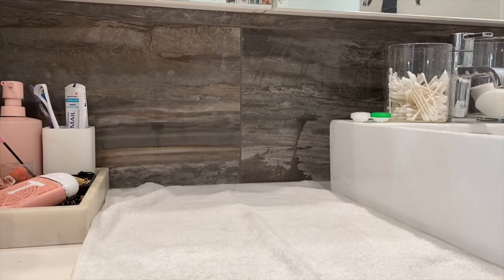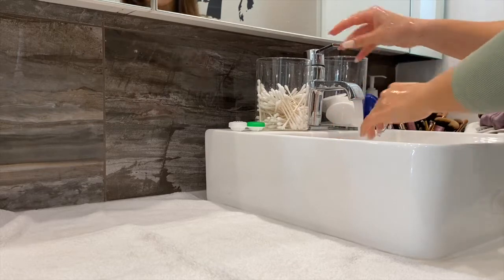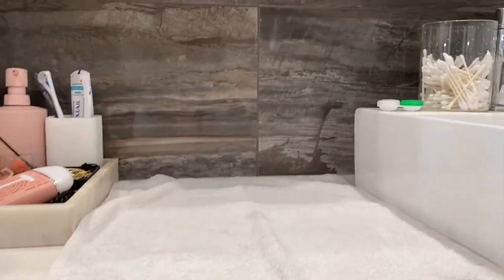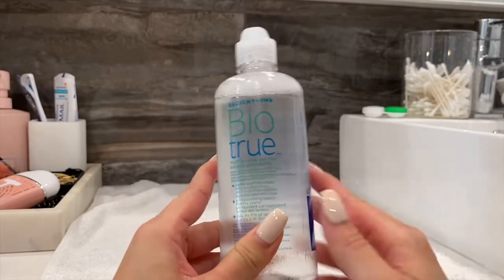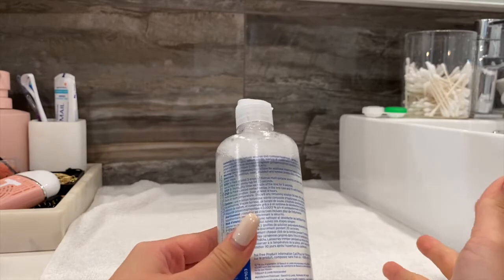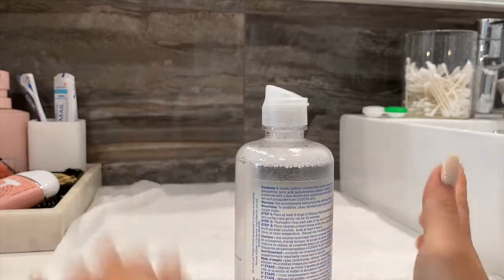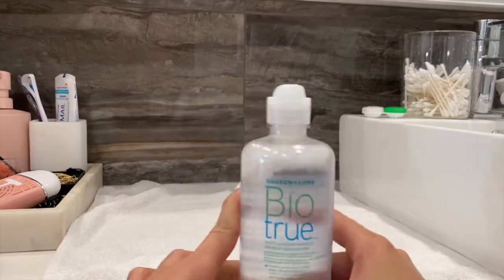Make sure the towel is clean, and obviously start with clean hands. Dry off on a non-lint towel or paper towel — don't use tissue, because tissue leaves lint that will transfer onto the contact lens. With Bio True or any multi-purpose solution, some claim you don't need to physically rub the lenses, but I'd highly recommend rubbing with your finger to loosen up deposits and dirt from the day. This solution says soak at least four hours, and as a multi-purpose solution, if you need to take them off to shower and put them back on within four hours, that's fine.